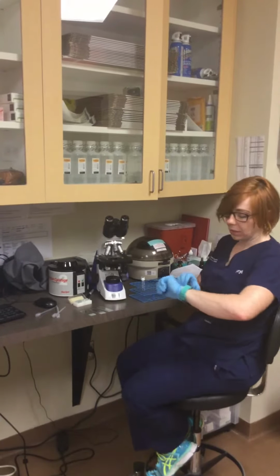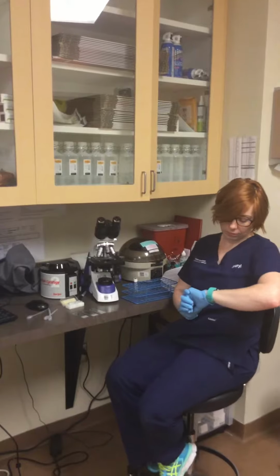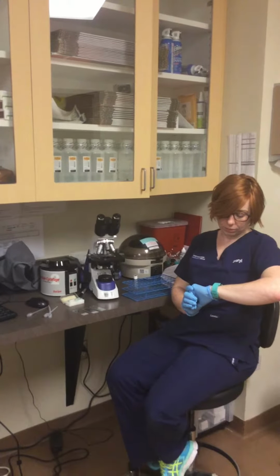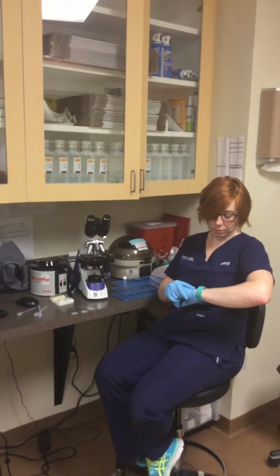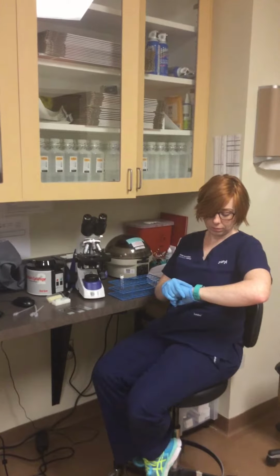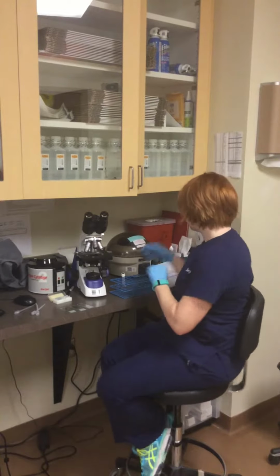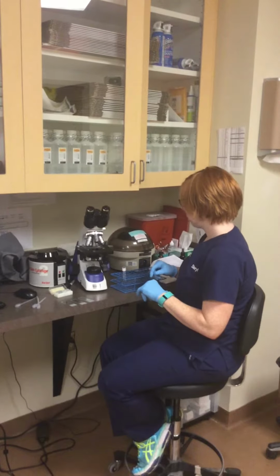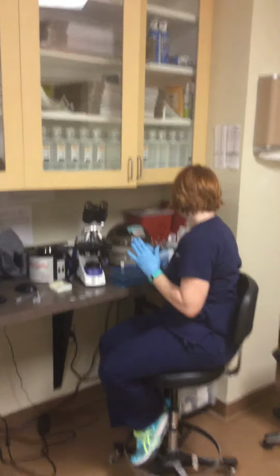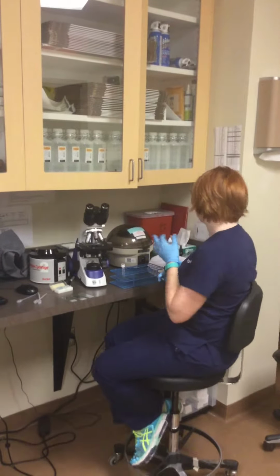So I'm going to time for 15 seconds. So it's been 15 seconds. And I'm going to examine the supernatant for hemolysis.